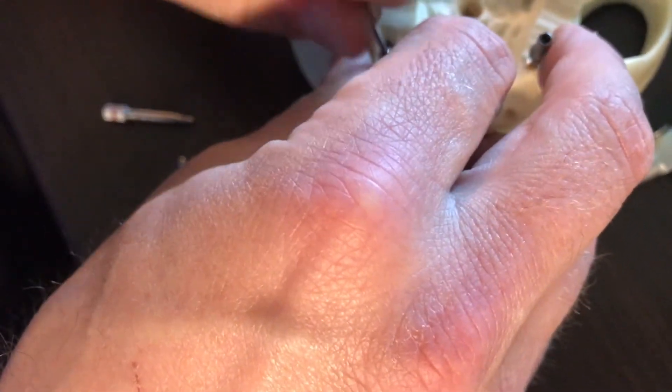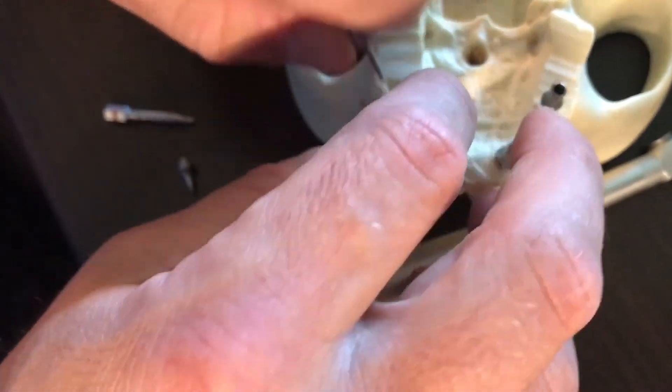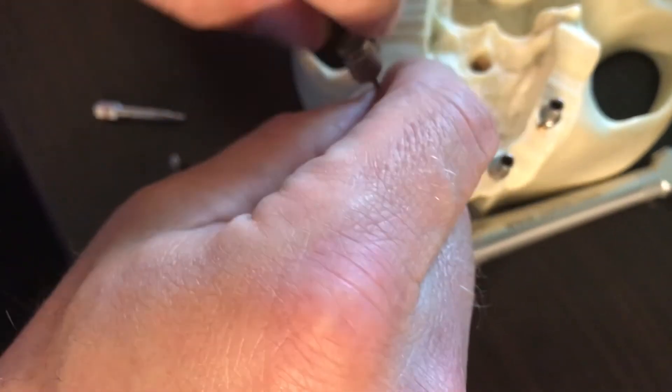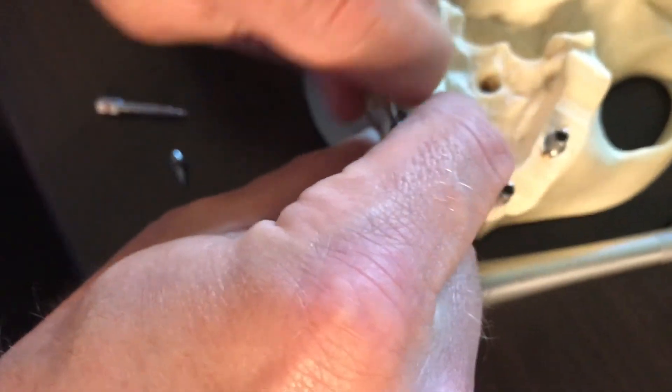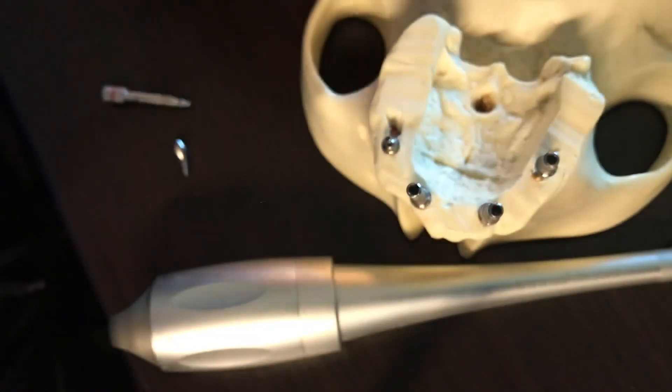For time's sake, I'm just going to use a hand model. I'm going to back this guy up — click, click, click, click — I hear the clicks. Remember that with this Cone Morse connection, I really need to wiggle to get these abutments off. Hopefully your doctors don't get nervous — if these things stick, it's a good thing.